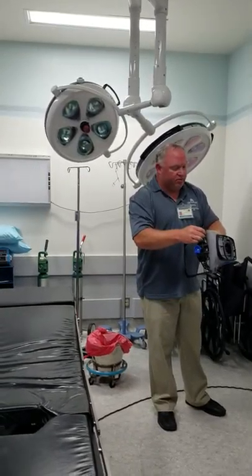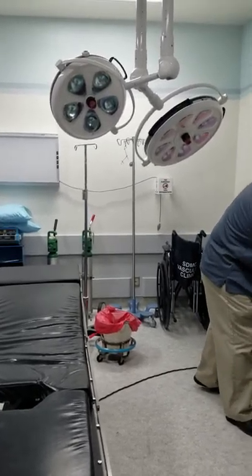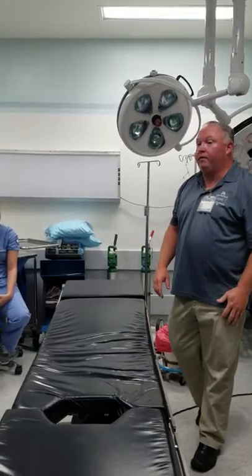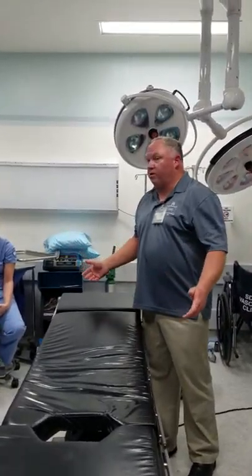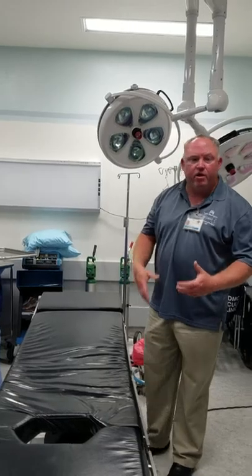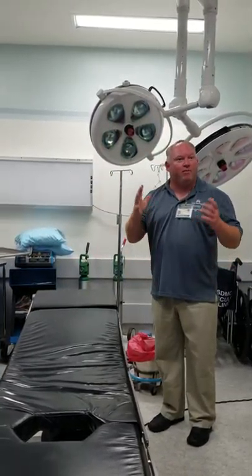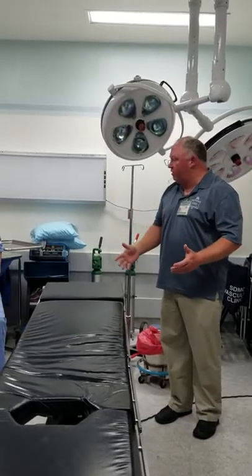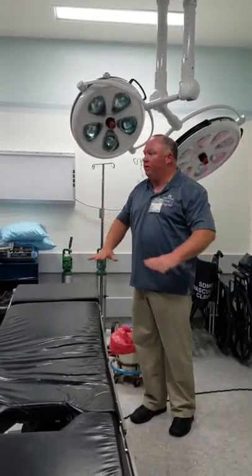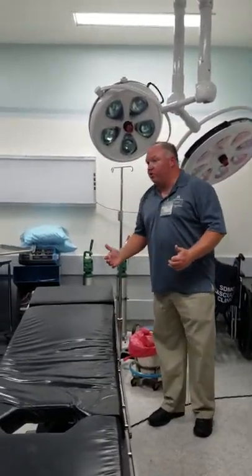So that was the anterior approach with the patient supine. Now we're going to go back to the beginning and do the lateral position. One of the things you need is a positioner — there are a lot of different ways to do lateral. You could do a bean bag — that's kind of old school. Most total joint cases aren't going to use a bean bag; it kind of gets in the way. Most people are going to use what we call a hip grip.